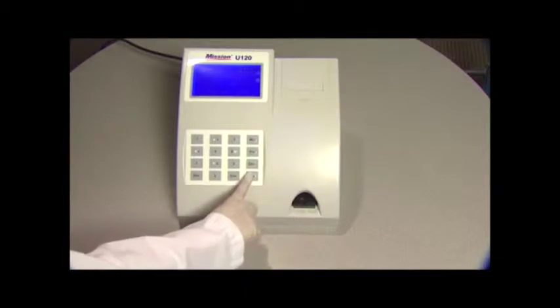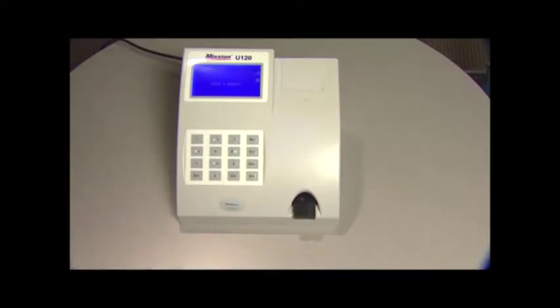For daily cleaning, remove the strip holder by pressing start to fully extend the strip holder. Turn off the power switch after the strip holder is fully extended.